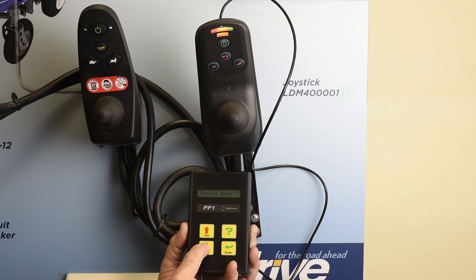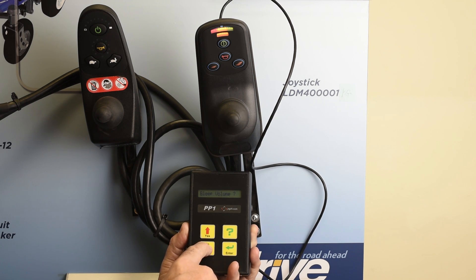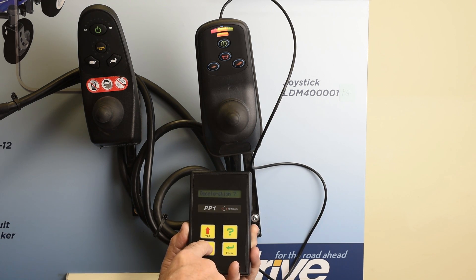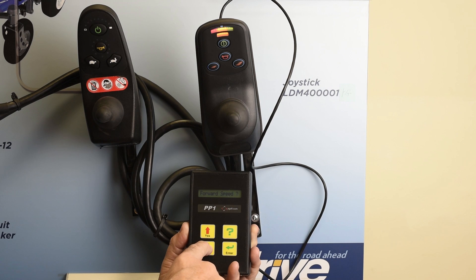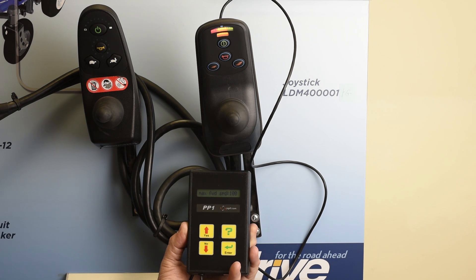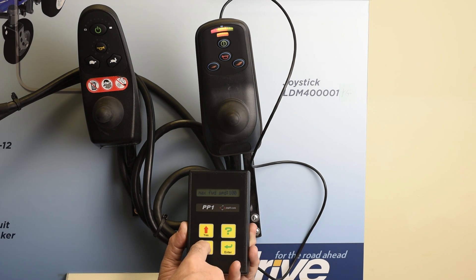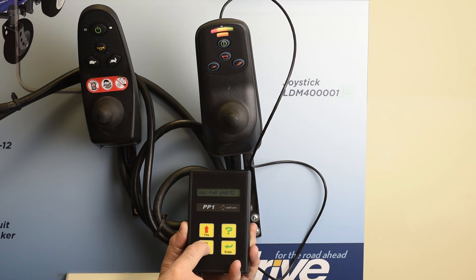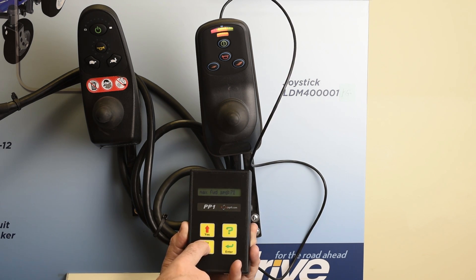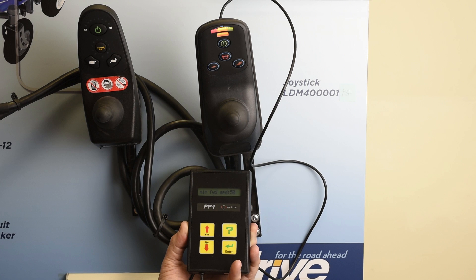We'll scroll down to the maximum forward speed. As we scroll down, we see forward speed. We hit enter and see that it's set at 100 percent. We want to bring it down — in this case, let's go to about 70 percent. We step the arrow down, hit the enter button, and it says you chose 70. Now it says minimum forward speed.